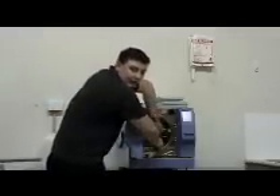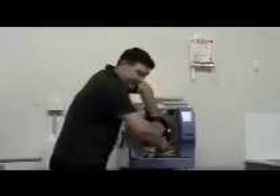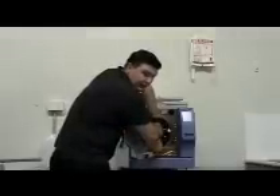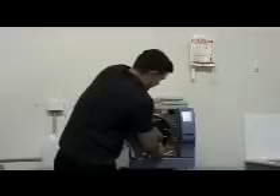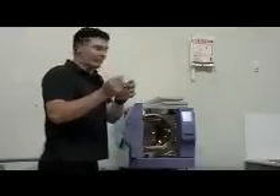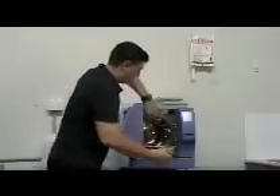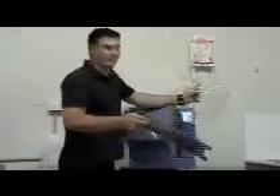In the front of the steriliser is located a small nut or screw. By placing your Allen key into that screw and turning it in an anti-clockwise position you will be able to remove the screw from the actual chamber. There is also a little silicon dam located in the front — just be careful that that doesn't fall off onto the floor. The rack support and the foil covering grid will then simply slide out of the chamber.